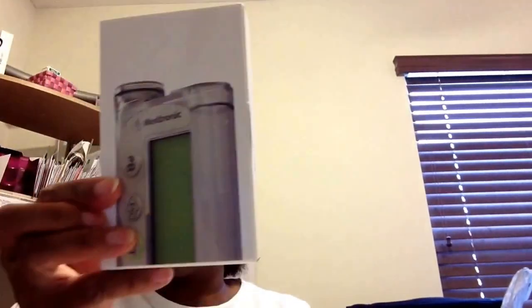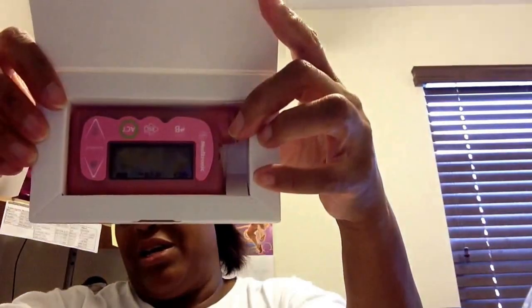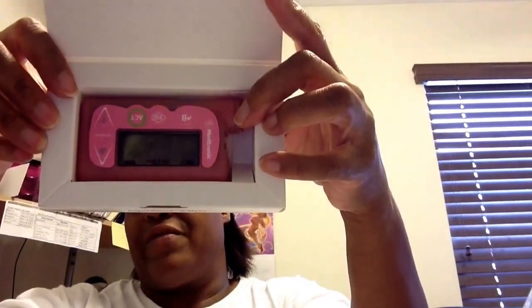There is a little box here that says MiniMed 530G with a picture of it on the front. And inside came my very beautiful MiniMed 300 Reservoir 530G pink pump. I've gotten back into pink in the last couple of years — it's really funny. I hadn't really been a blue kid or a red kid. If they had red, I'd have been all over it, but they didn't have red.